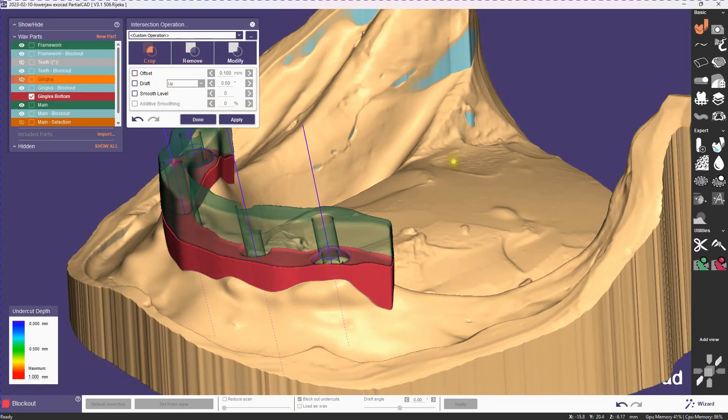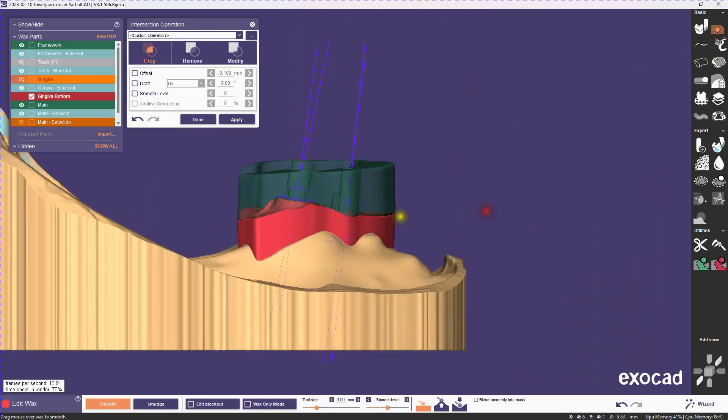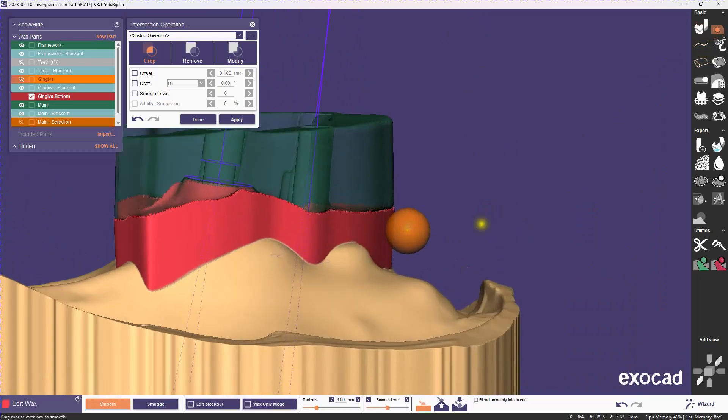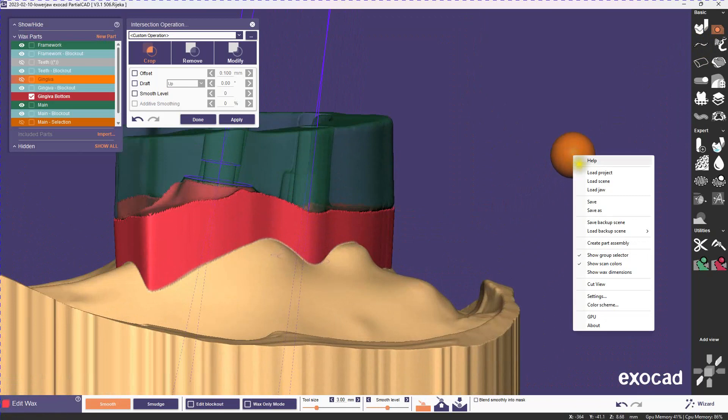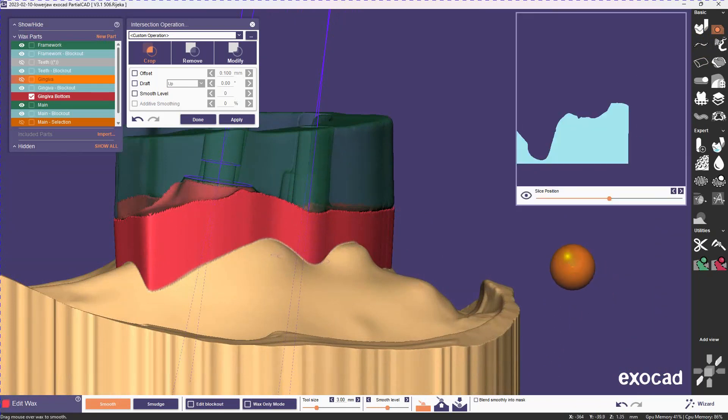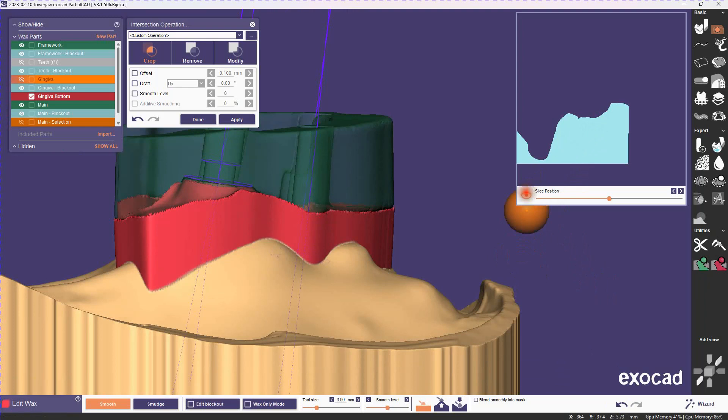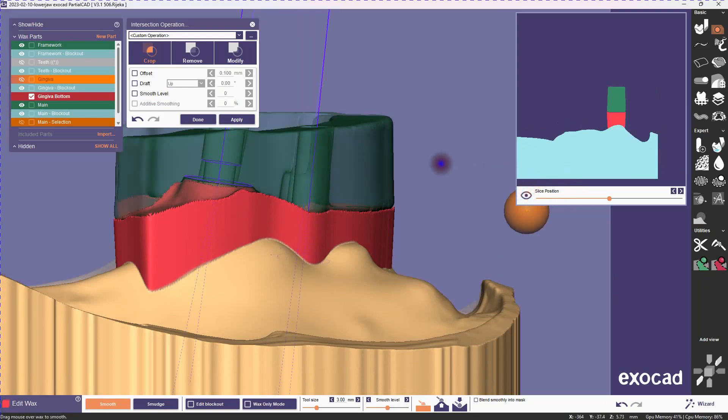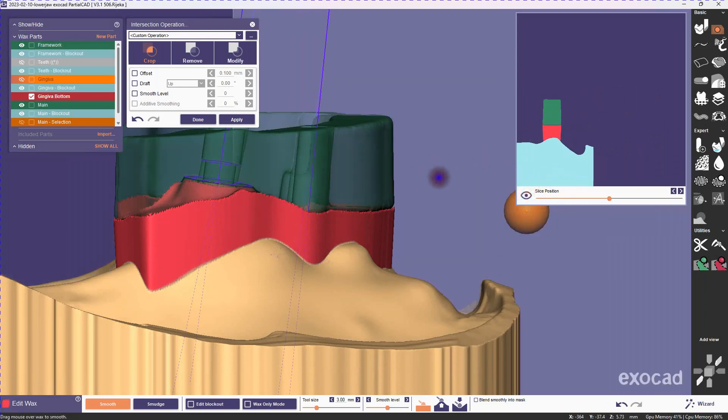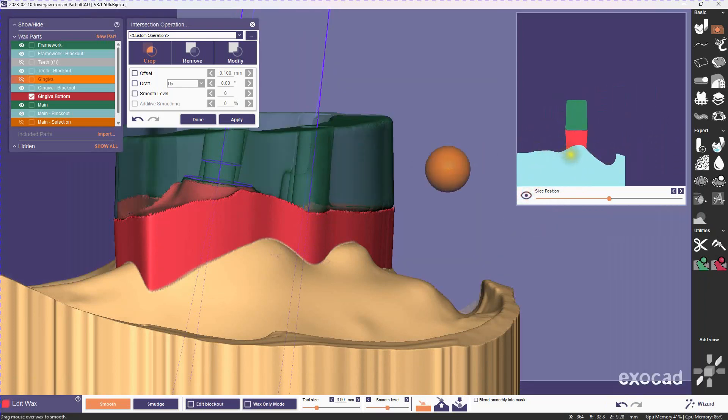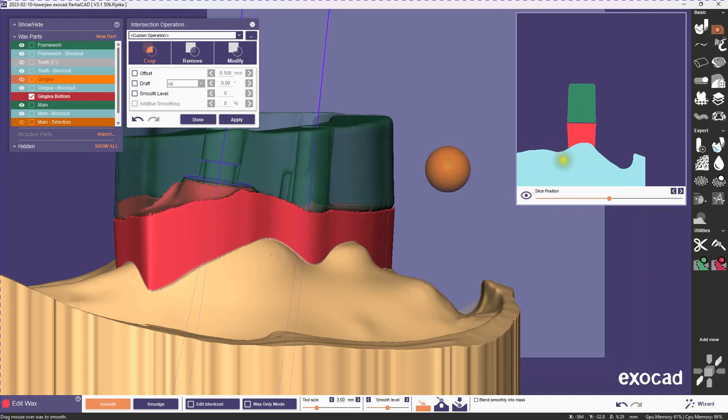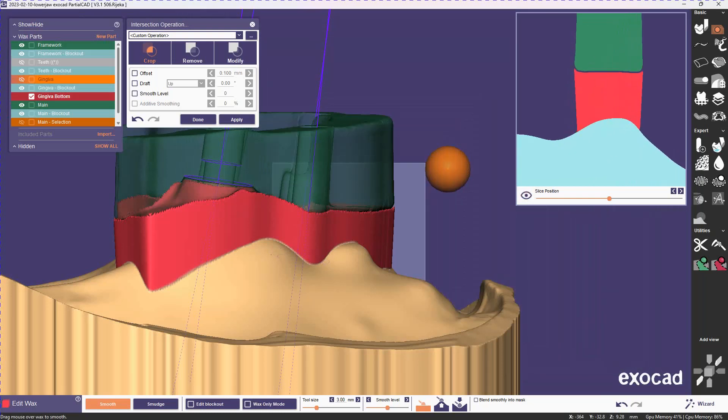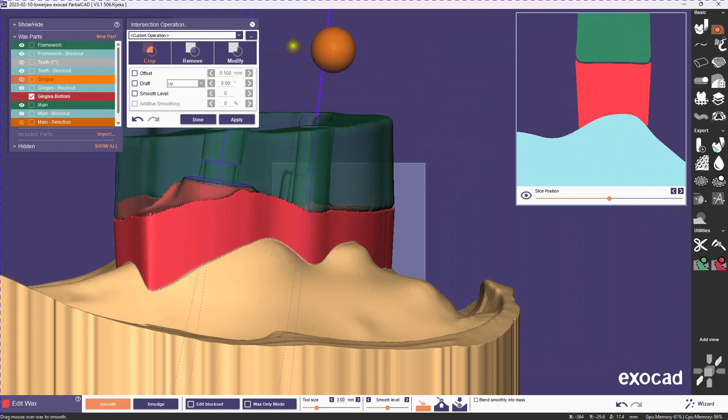The main issue at the moment is that we have kind of a sharp edge. The bar is rounded a little bit on the bottom, and that causes the bottom gingiva to creep up alongside of it. It's not a big deal. We can easily clean it up. There you see the gap that I created, and you can see how it's sort of creeping up in the edges there.